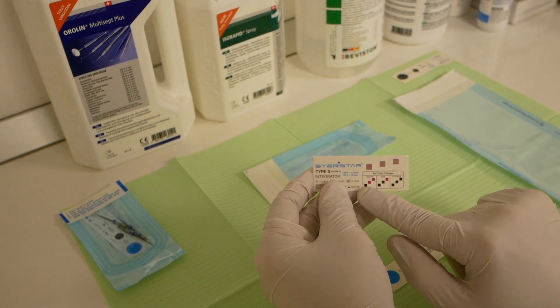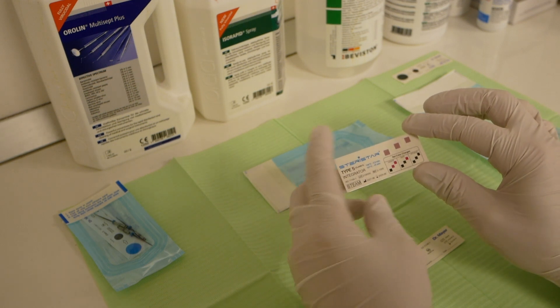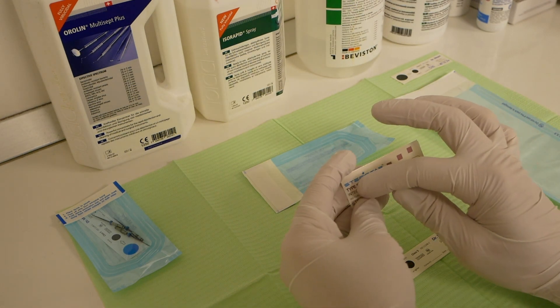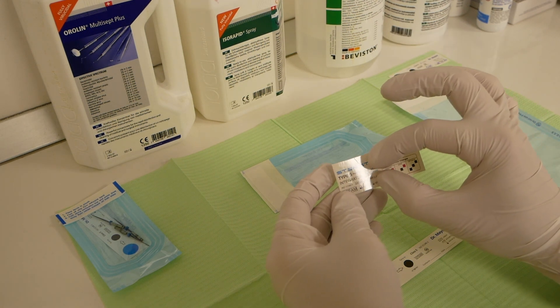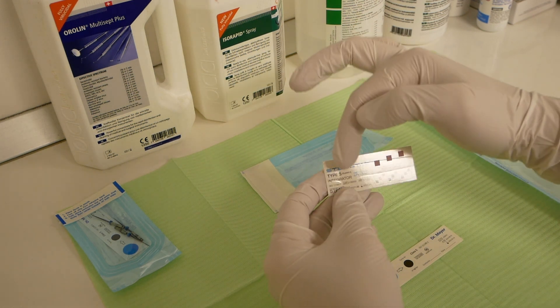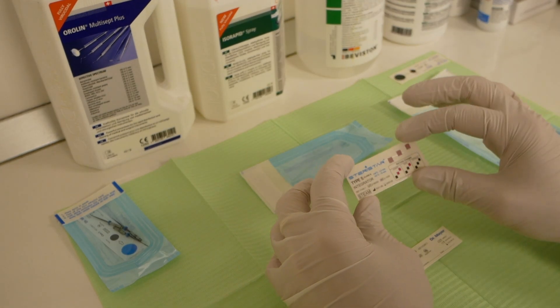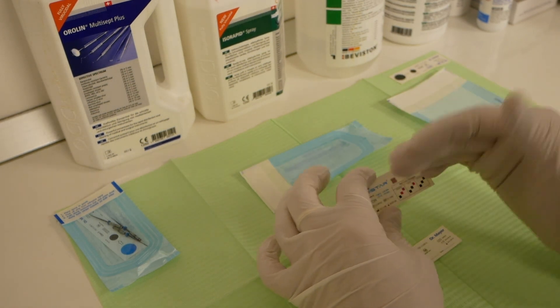It's also acceptable if two of the three squares change color from dark red to brown. If only one or none change color, proper sterilization has not been achieved. Other types of strips include a progression bar design, where there's a bar along the paper strip that changes color progressively towards the end, the longer the strip is exposed to certain conditions of temperature, pressure, and time.